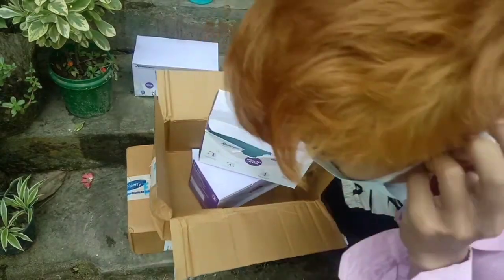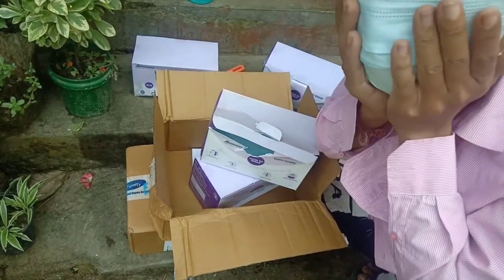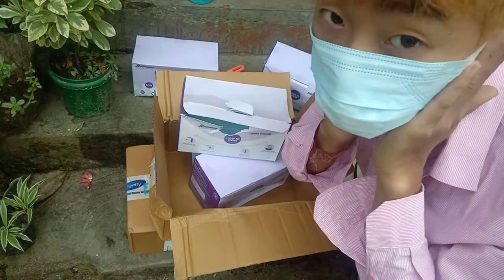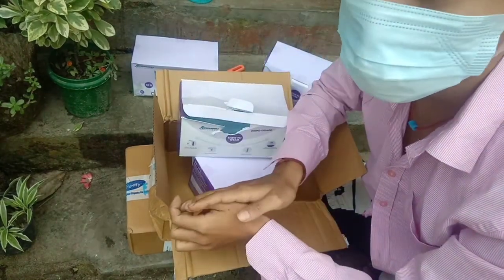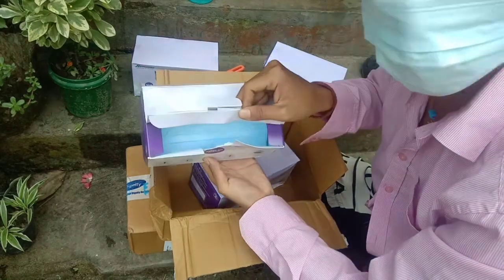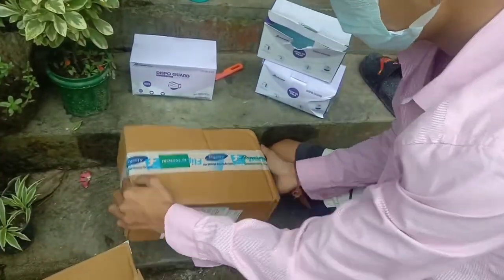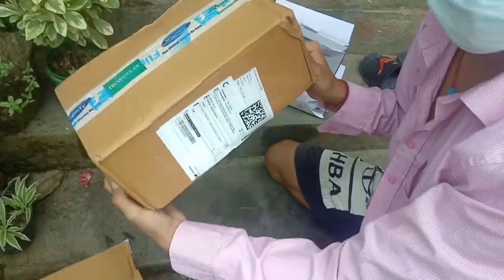Sorry, my audio was bad so I had to remove it, but it's very satisfying and very comfortable. I'm going to wear it — I didn't realize it wasn't showing in the video. But the thing is it's really comfortable; your ears don't hurt much. It doesn't hurt, as you can see.